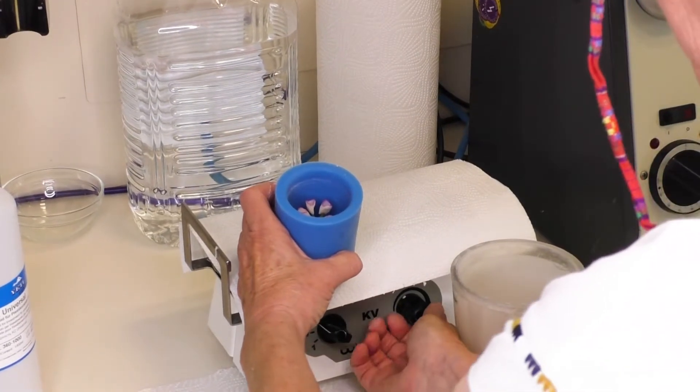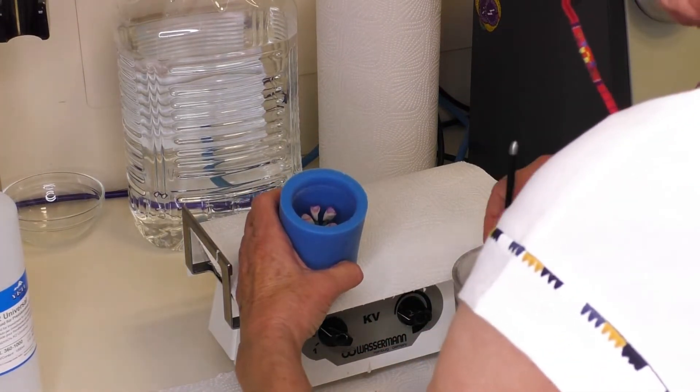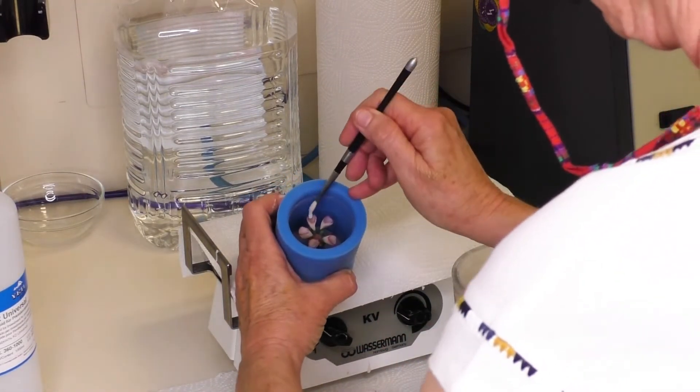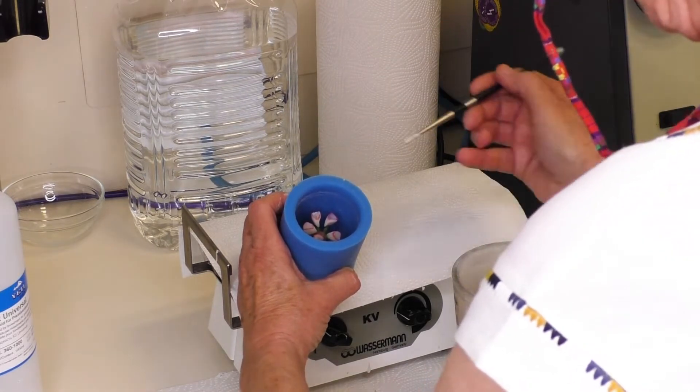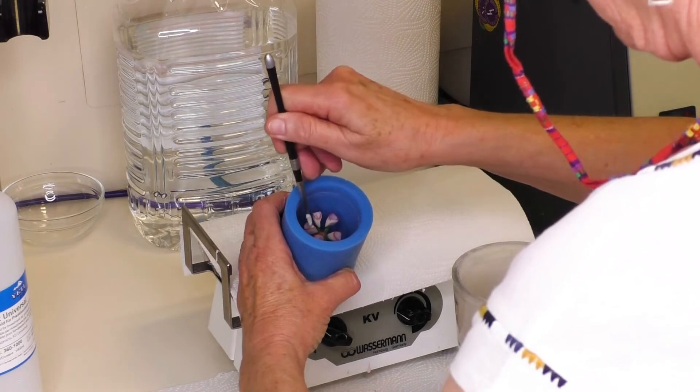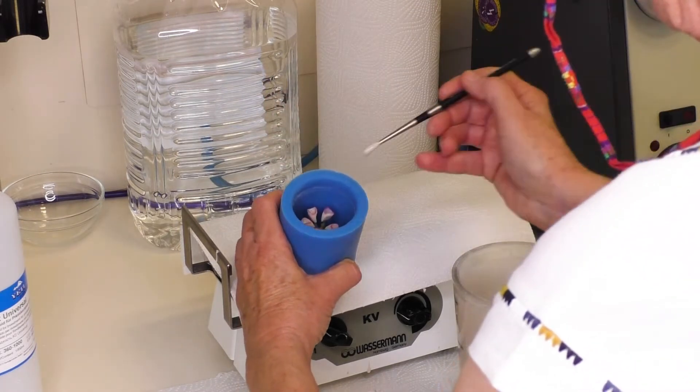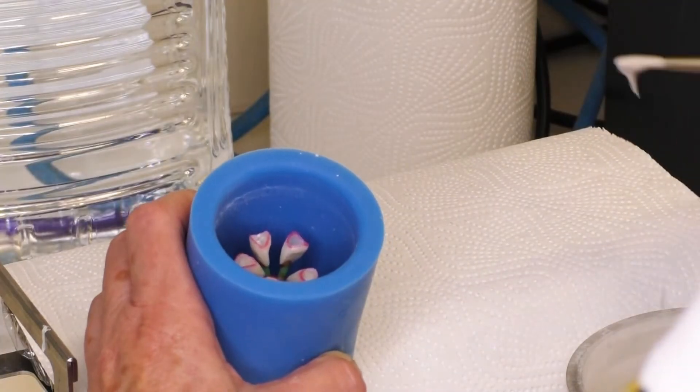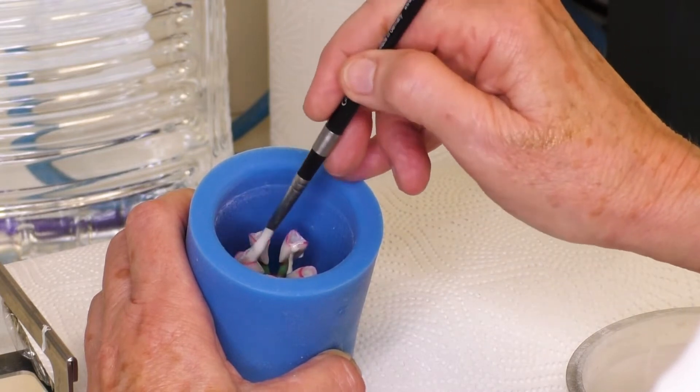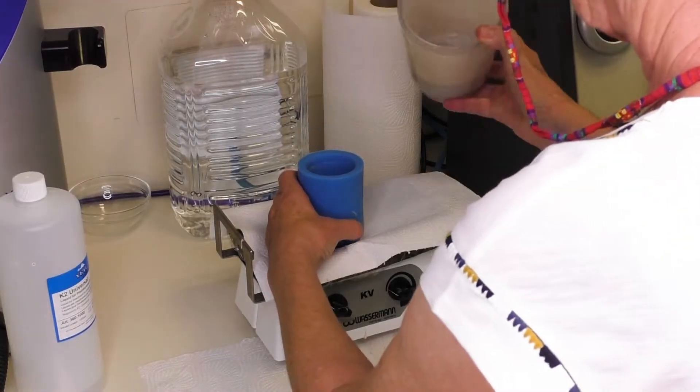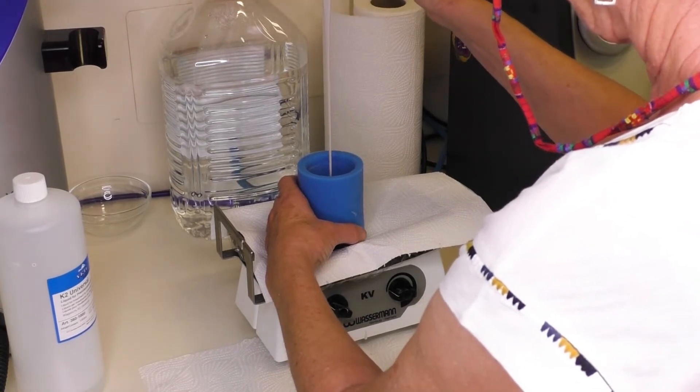We recommend to use the vibrator on the side to the softest level. Make sure to use the vibrator on the softest level.